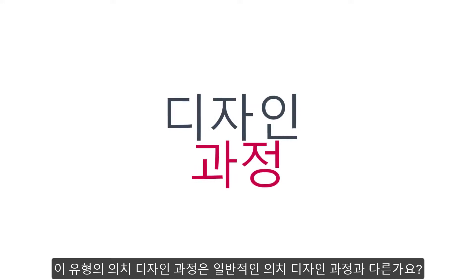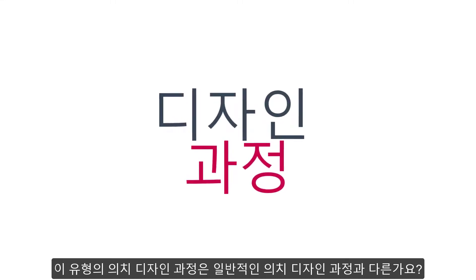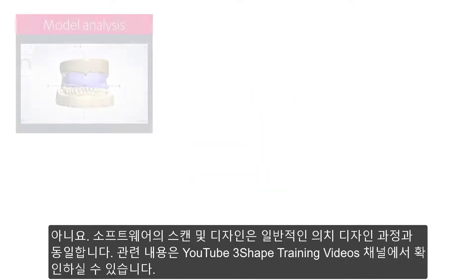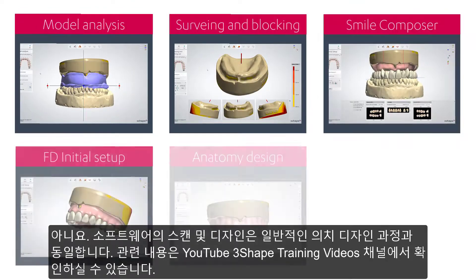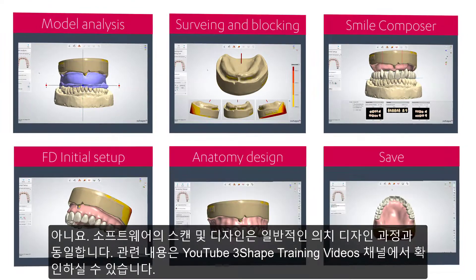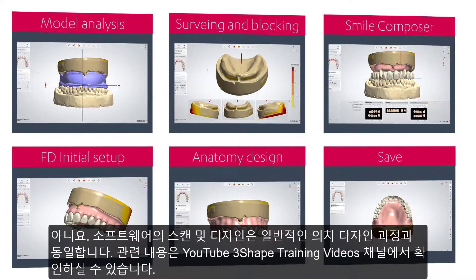Does the design process for this type of denture differ from the standard denture? No. The scanning and designing in the software is the same as for the standard denture shown in our previous videos.